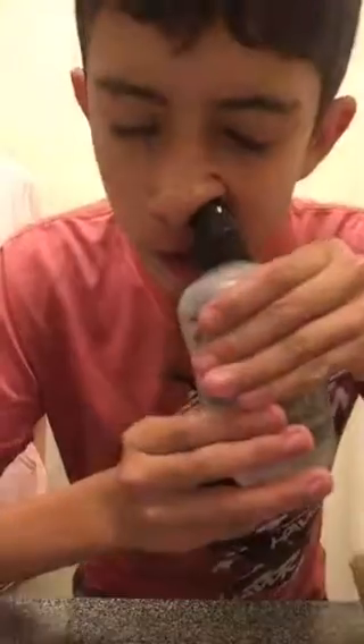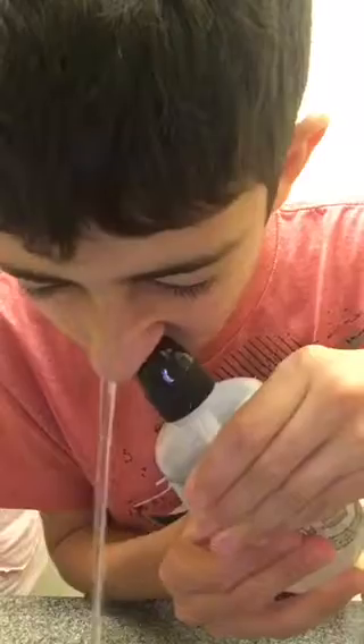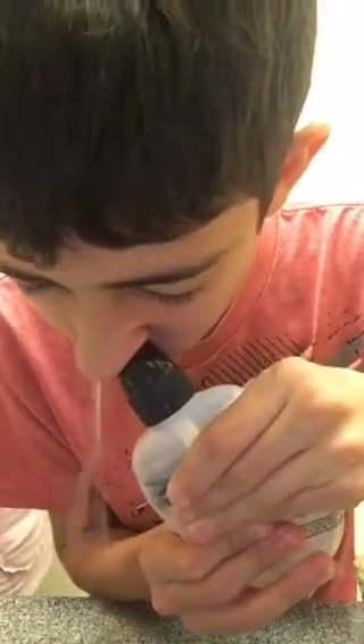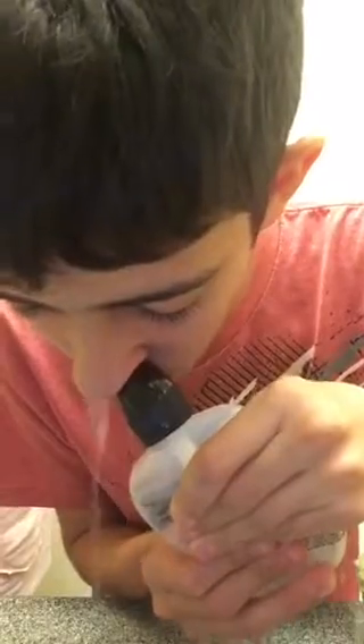Three, two, one. Touch your head a little bit. Breathe through your mouth — take a break. Wow, that was too fast. Before you use it, you need to shake it up and always cover the top.